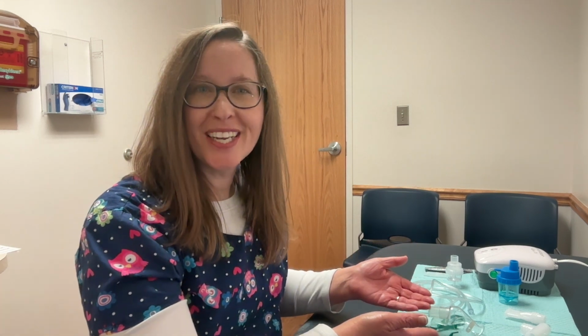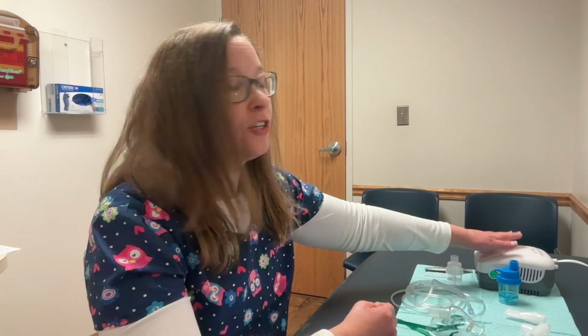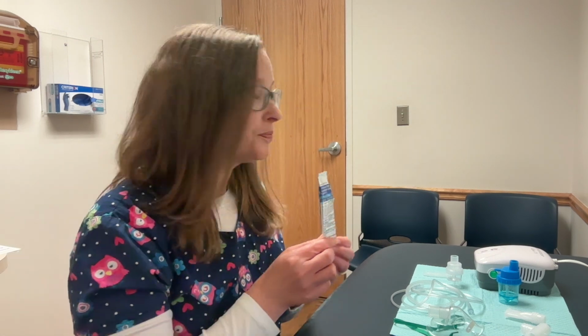Hello, and welcome to Pediatric Nebulizer Use. I've gathered our equipment here. You'll want to plug in your compressor machine and then wash your hands before we touch our equipment. Your healthcare provider will have prescribed medication for you to breathe easier. Today we're using albuterol.